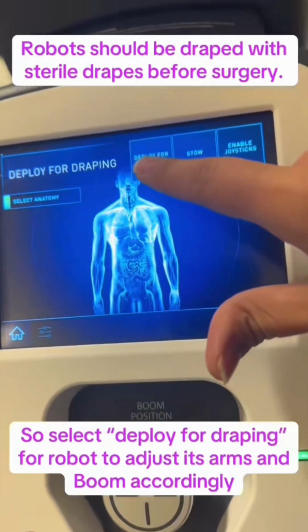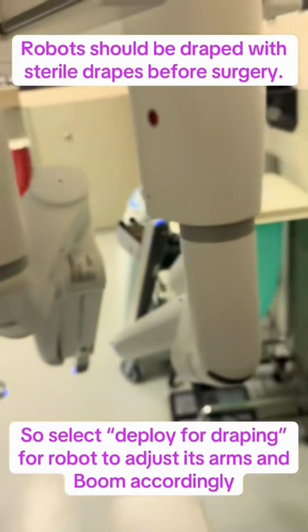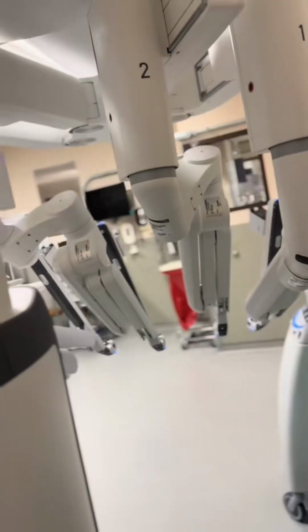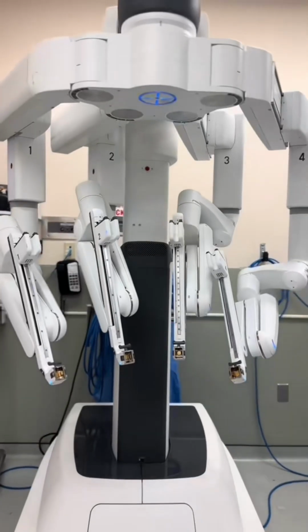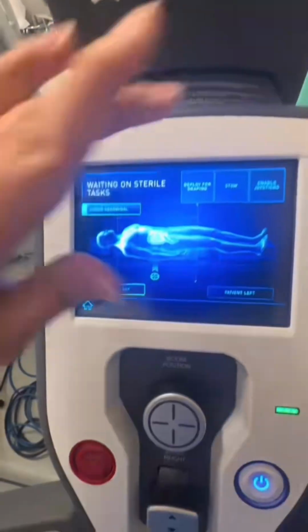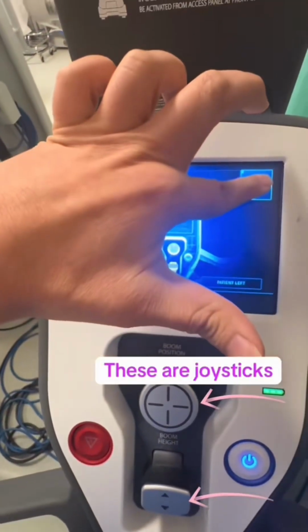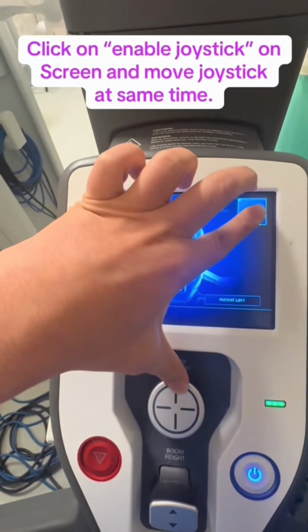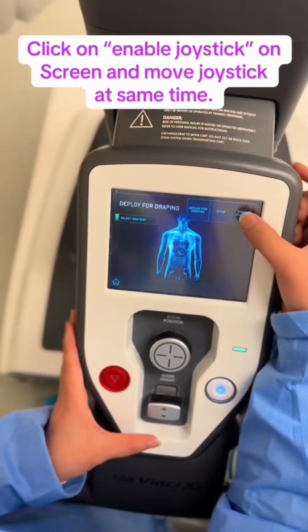Likewise, if we click on deploy for draping, the robot will adjust its boom and arms so that we can drape the robot with the sterile drapes. Similarly, to adjust height and position, there are two joysticks below the screen. To enable those joysticks, we should click on enable joystick and move the joystick at the same time.